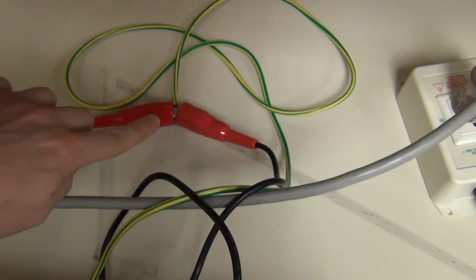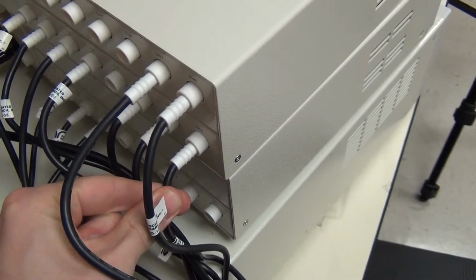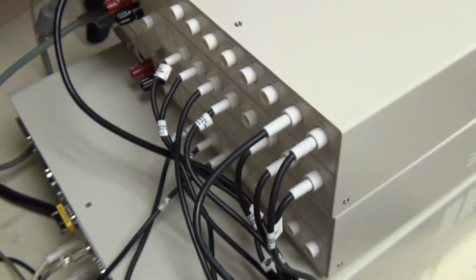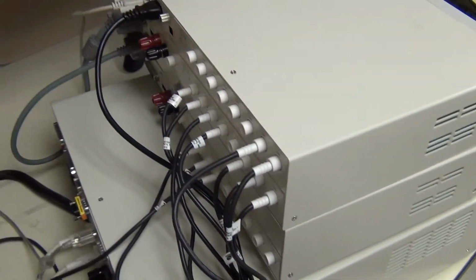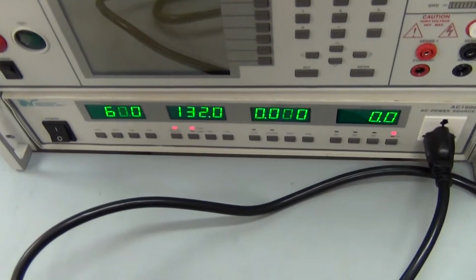I also have a protective earthing connection from the medical device, which is going here into channel 8 on this master scanner, as well as channel 3 on this slave scanner. And I'll explain in a moment why I'm using 2 scanners and why I have 2 PE points. But I basically just wanted to show how the patient leads are connected so that we can run this in an automated sequence.